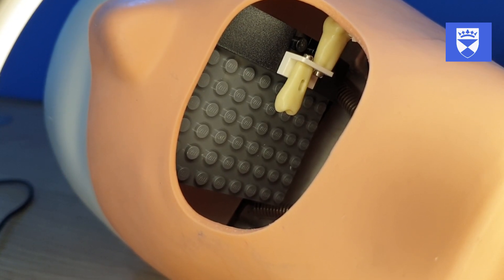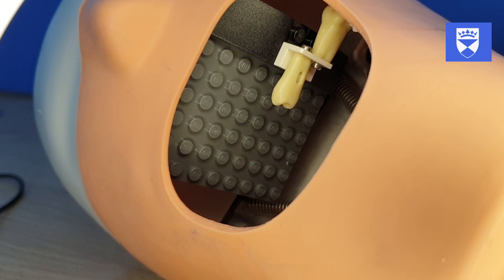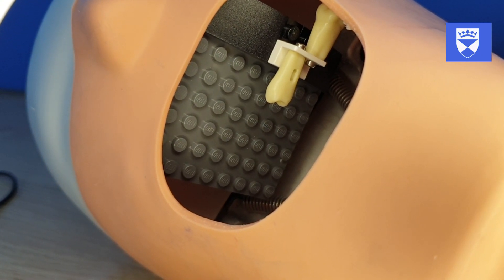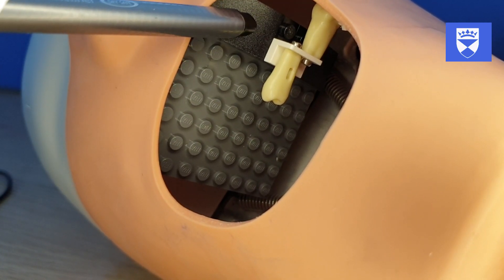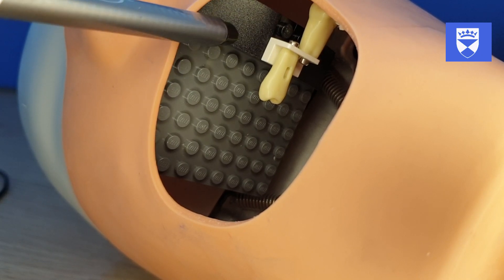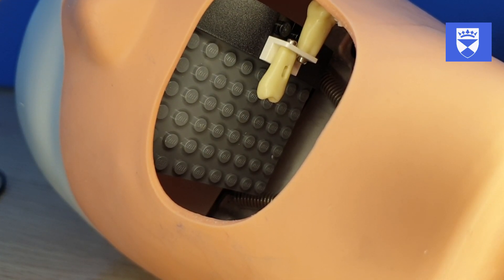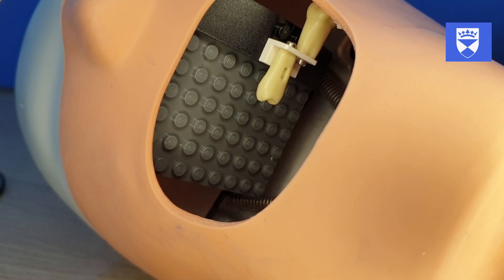One of the potential areas that we can improve this for the next iteration is we could replace these slightly canted blocks with ones that simulate additional teeth in the arch, which would allow the students to place finger rests on those blocks.